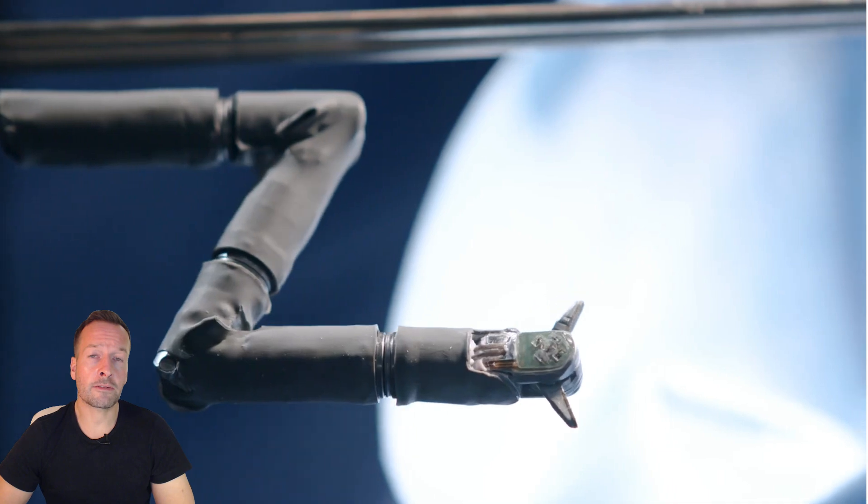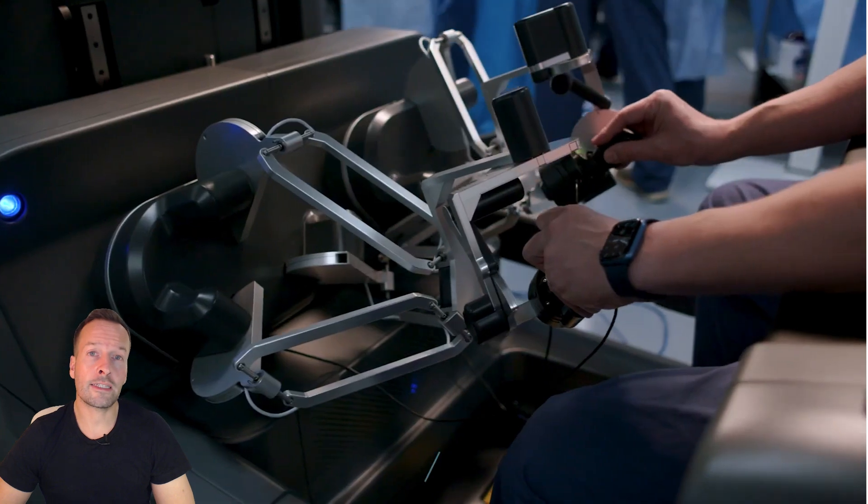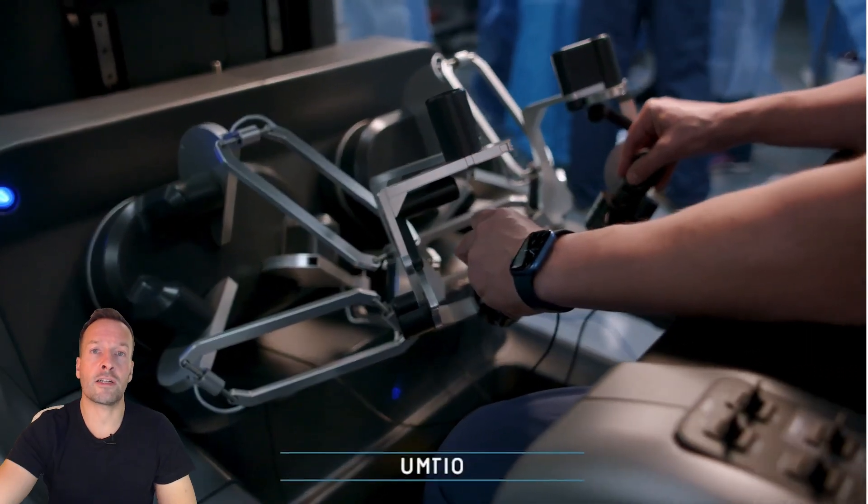With Vicarious Surgical's minimally invasive approach, patients can return to their normal lives much faster, avoiding the extended hospital stays and endless reruns of daytime TV.